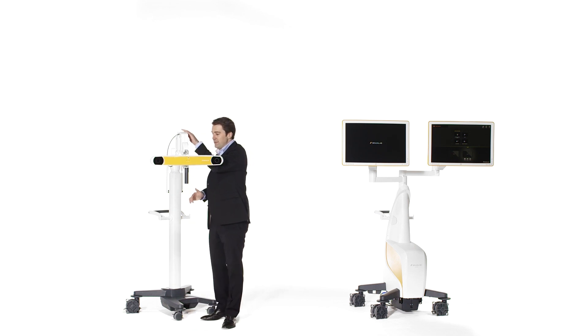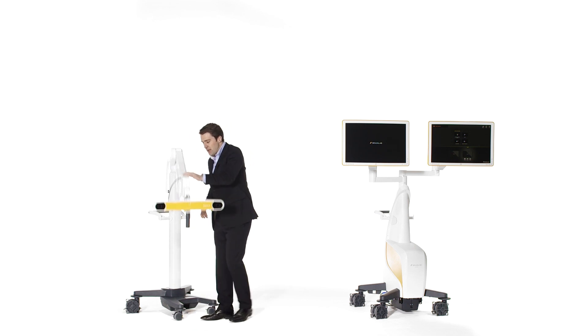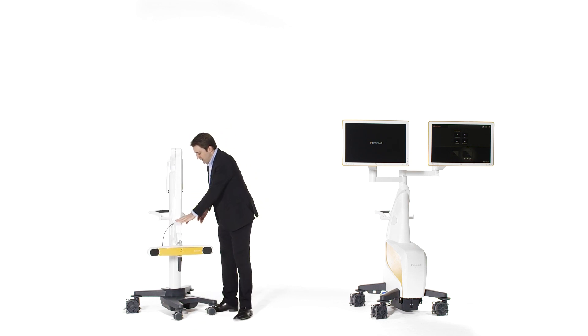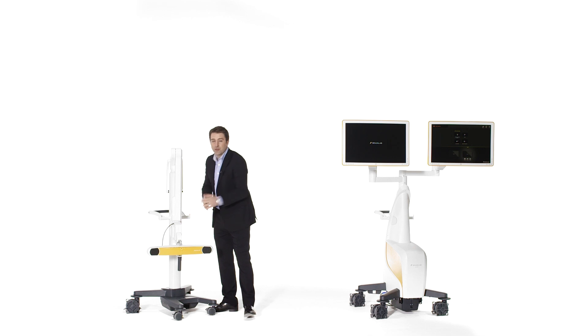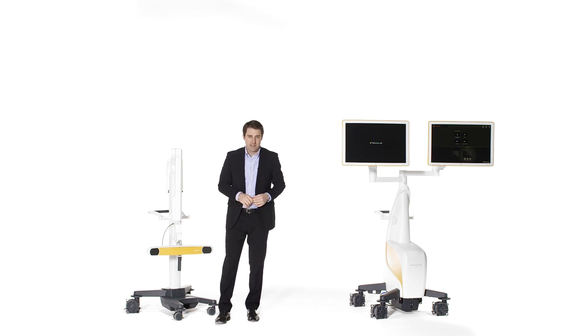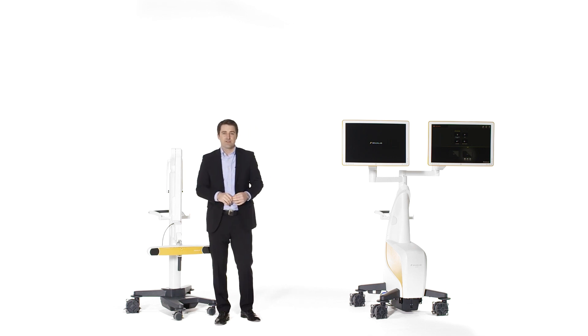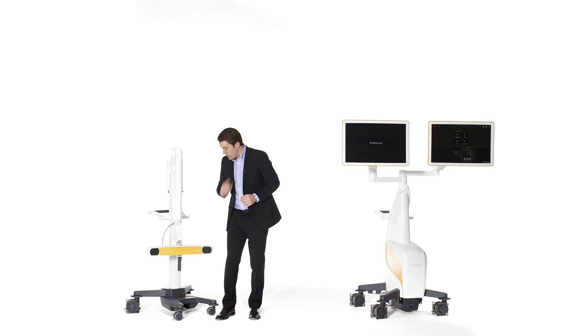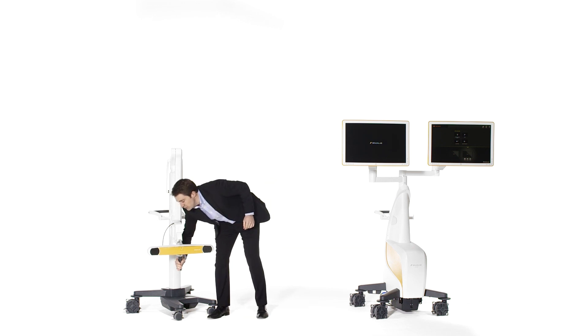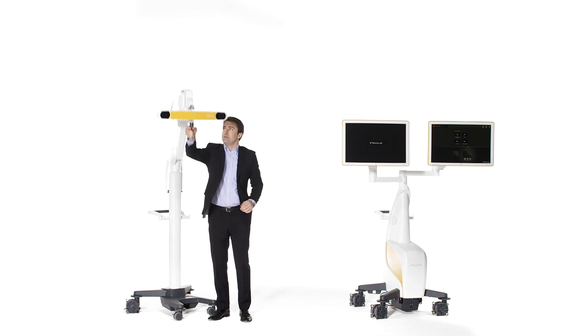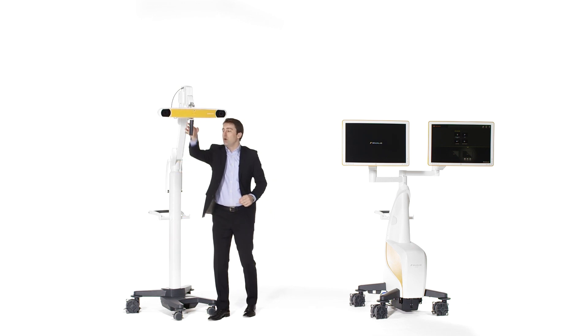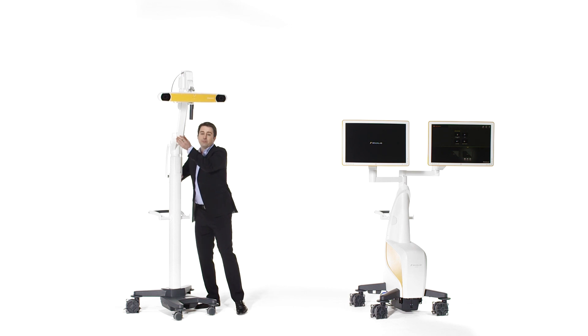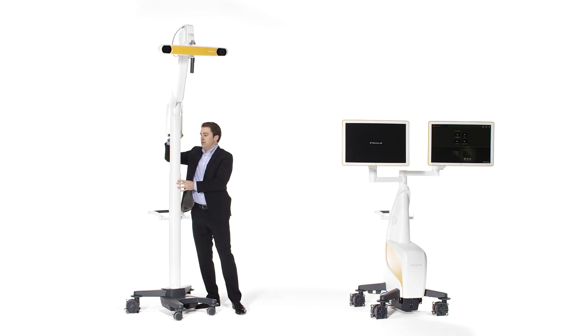The camera stand offers a range and height adjustment from 67 cm or 26 inches, particularly helpful for registration in prone cases, all the way up to 254 cm or 100 inches for optimized visibility.